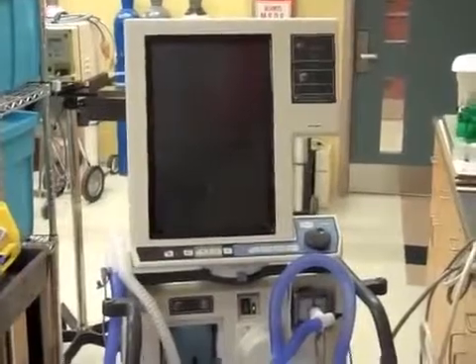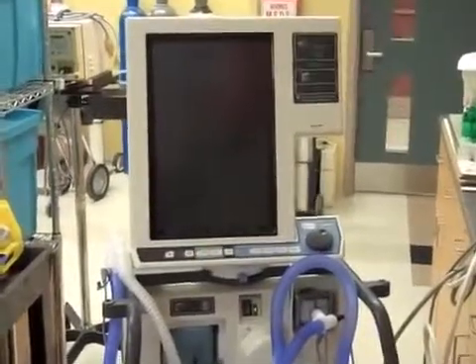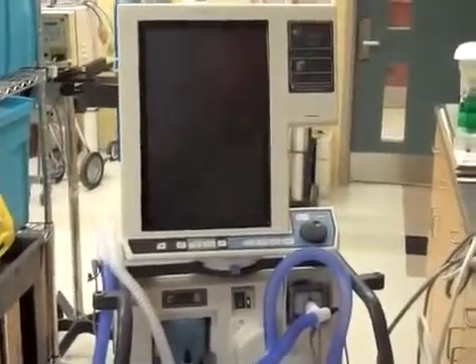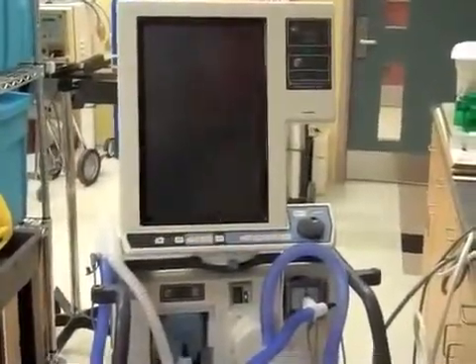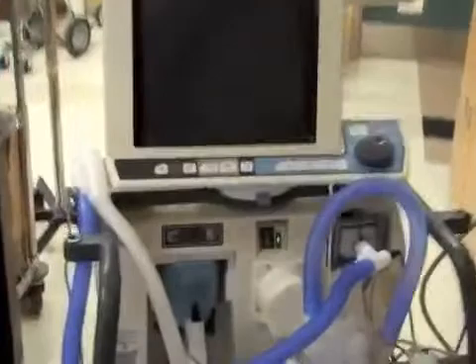Okay, so we're going to continue on with a series of ventilator checks and pre-use checks. This is the PB840 by Covidien. We can see this one's already circuited.